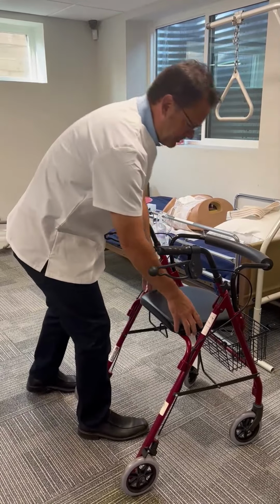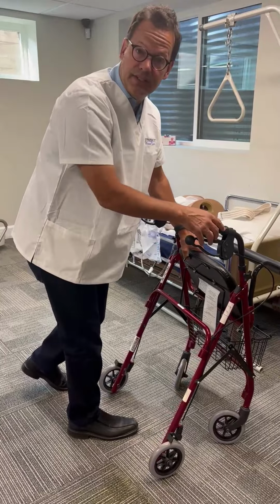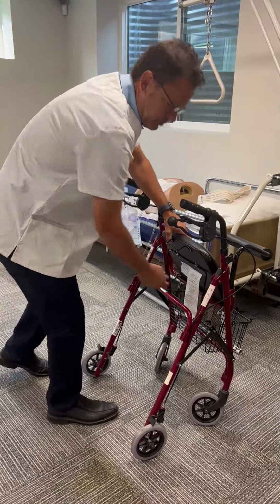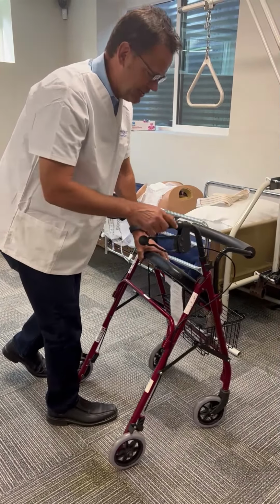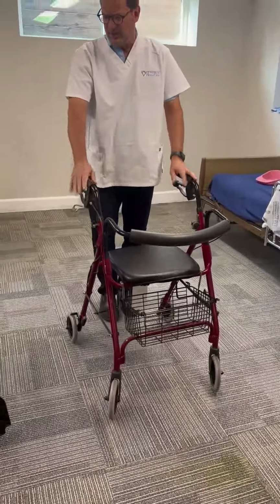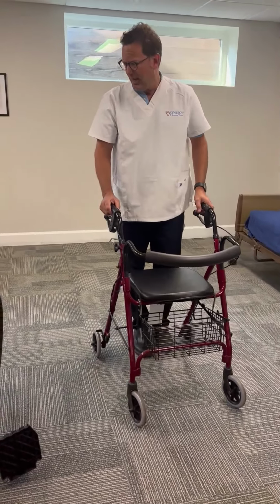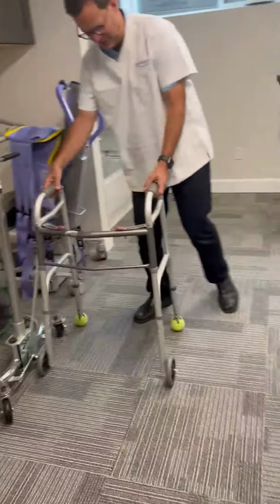To collapse one of these, you just simply lift up the seat. Sometimes you'd lift up the seat and there would be brackets, but similar to the wheelchair, it's very easy to collapse if you take those steps. So those are the common devices that we will be seeing out in our clients' homes. And this is just a walker. Thank you, Giselle.